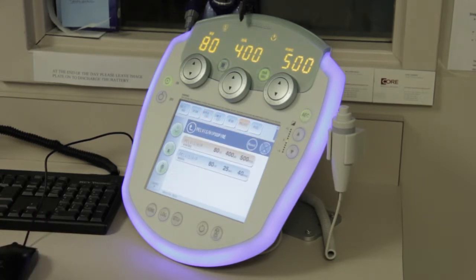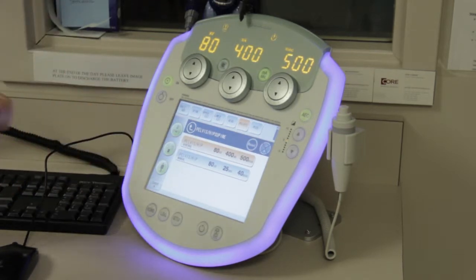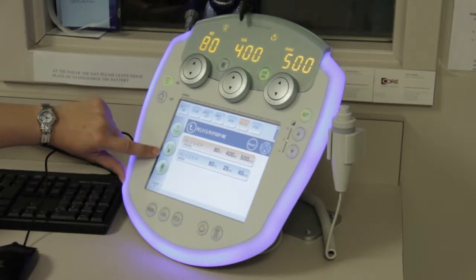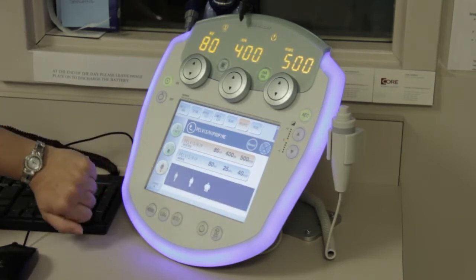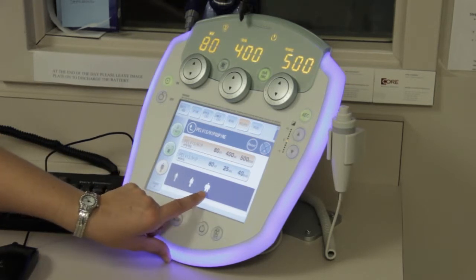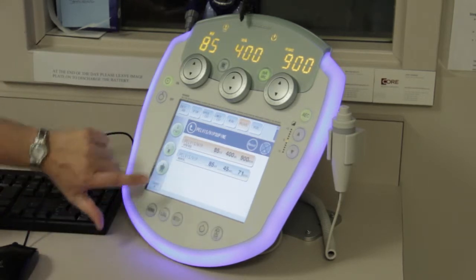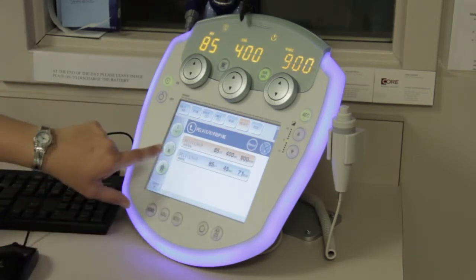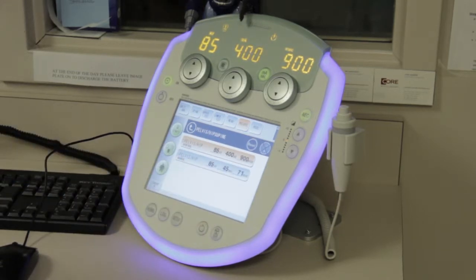The Canon is sending a message to the generator that I'm doing an AP pelvis on the table. On the left side of the screen you can see the table icon, the photo timer icon, and down here I have my patient habitus selection — you can see we have the skinny, the normal, and the sumo wrestler; this is a Japanese machine after all. Changing to one of these will change your technique according to what's programmed and will underline what has been changed — in this case it went up another 5 kV and gave us a longer backup time.